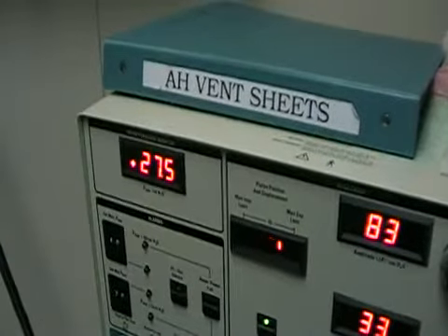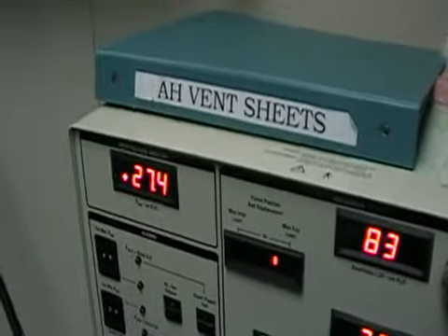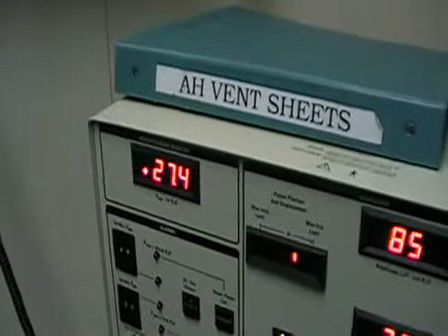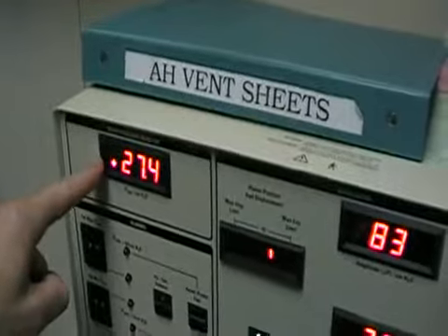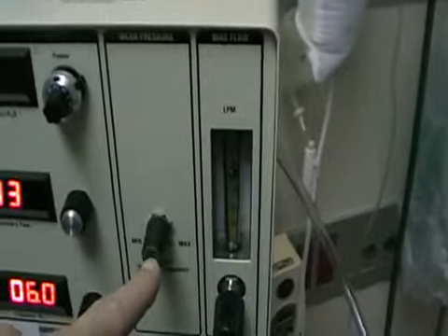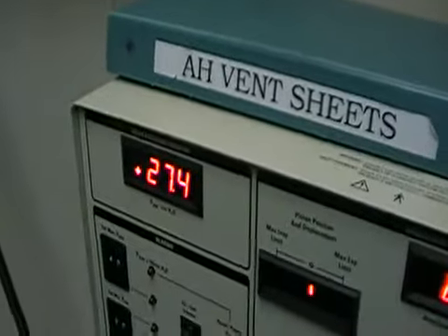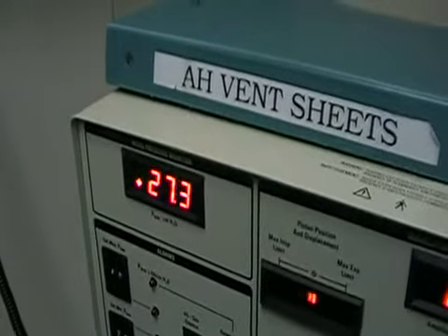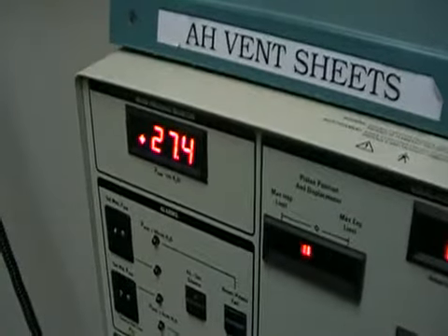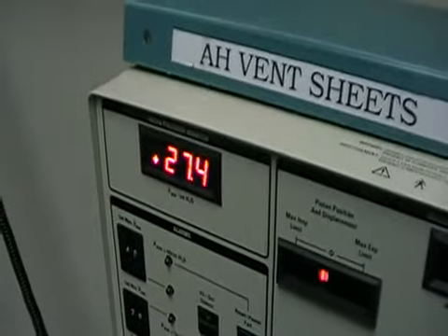The first thing you want to do is after you do your pre-cal and do your checklist to self-center the piston — you want to inflate the lung and recruit it. Do that by setting the mean airway pressure, which is set by moving this knob here and adjusting it until you get the mean airway pressure you need. Typically your starting off point on the ventilator would be about 5 centimeters above where you were on conventional vent settings. Get your mean airway pressure and check a chest x-ray to see what type of recruitment you have via your lung displacement.